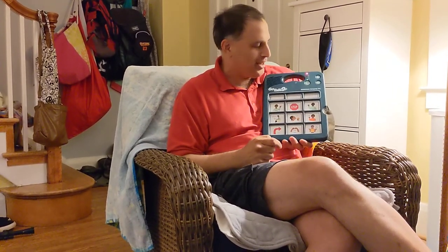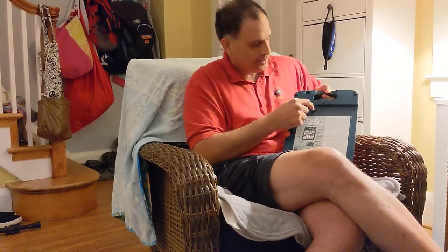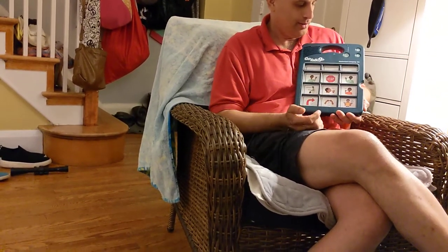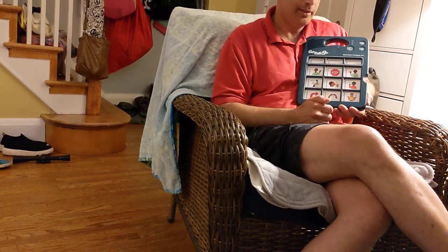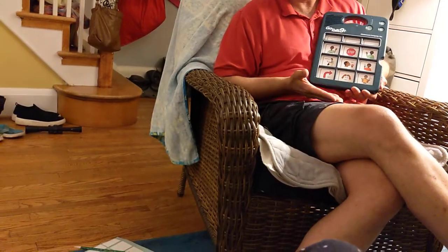"Bathroom. Drink." "Eat." That's my silly voice. But now, if I go back and press record again, the red light's gone — and that means the new messages are there and they're ready to play. "Hello." "Bye." "Eat." Now you can see they've been recorded with my new silly voice.